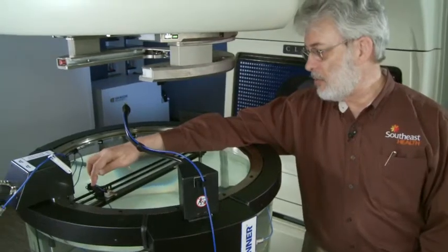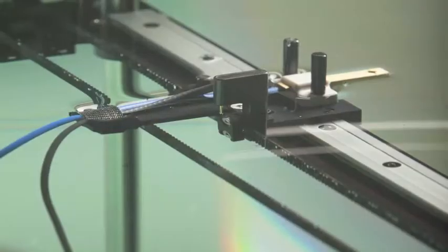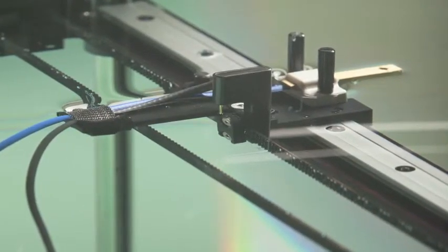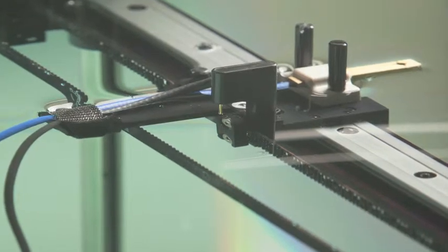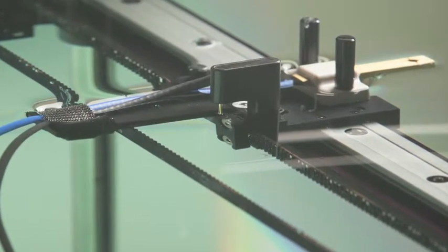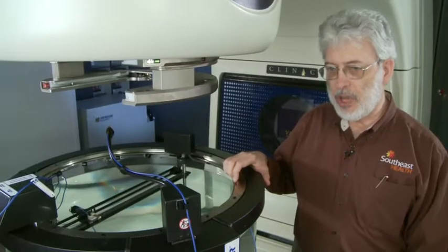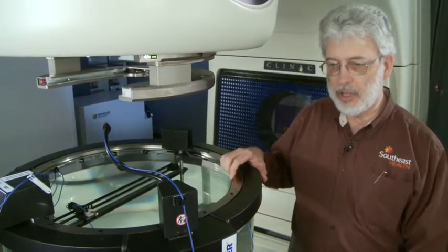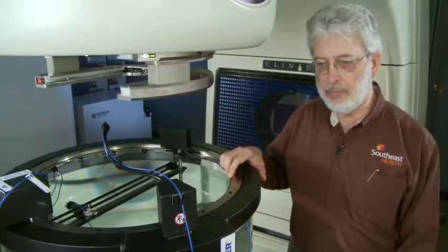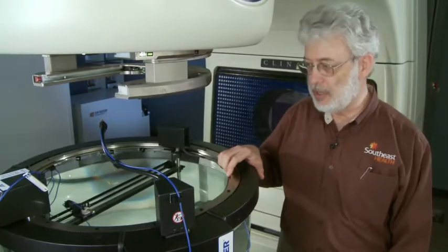If you look over here next to the detector holder there's a water sensor that detects the water surface at various positions around the circumference of the tank. From that information it determines the leveling information for the tank and so the base levels the scanning mechanism.